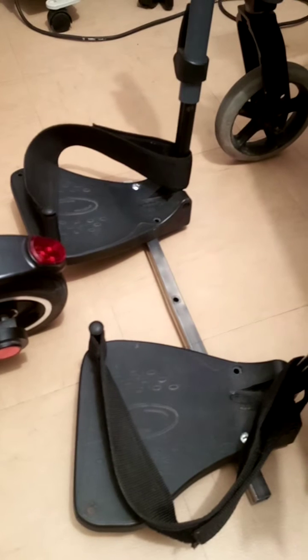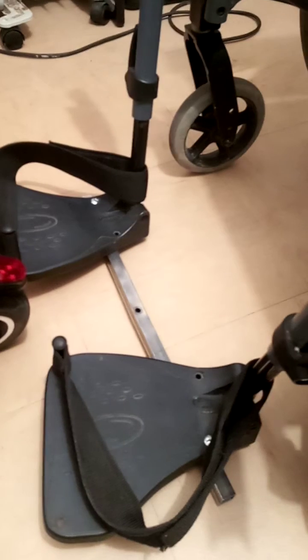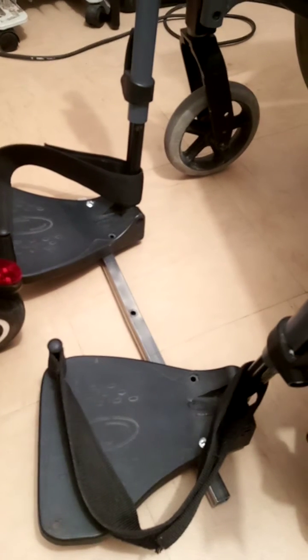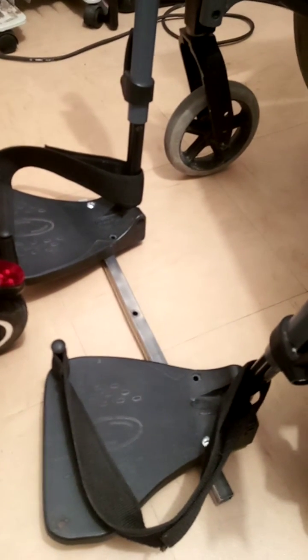It's not a single piece like some other wheelchairs, so I had to kind of make it into a single piece. I'll turn off now while I put the whole thing together, and then I'll do another bit to add on and show how it all goes together.